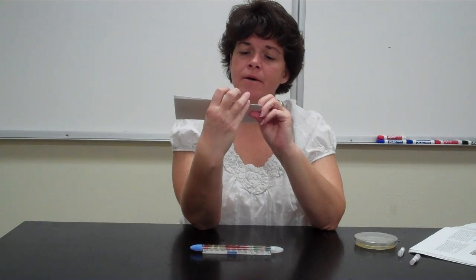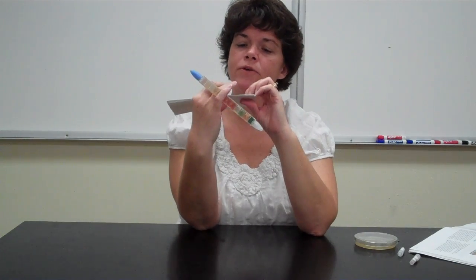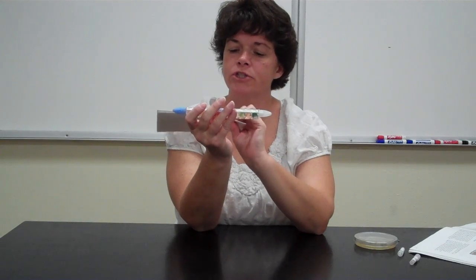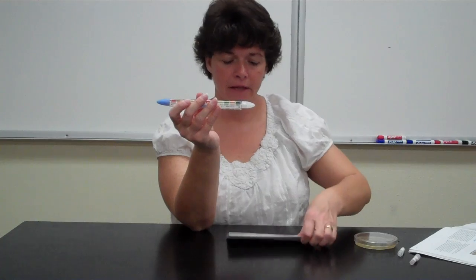And then this one here, unfortunately, has both the dulcitol and the phenylalanine all in one compartment. So if you get a positive for the phenylalanine, the green will turn to brown, and you won't be able to tell if it turned yellow, okay? So if it turns yellow, that means dulcitol positive. If it turns brown, that's phenylalanine. So they read both of them with that one compartment, okay? Like I said, if you get the brown, you won't be able to determine yellow.